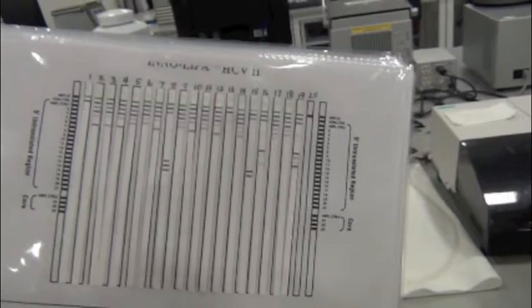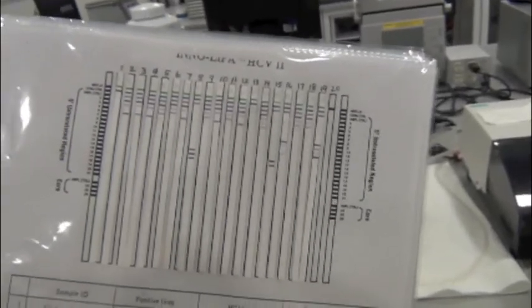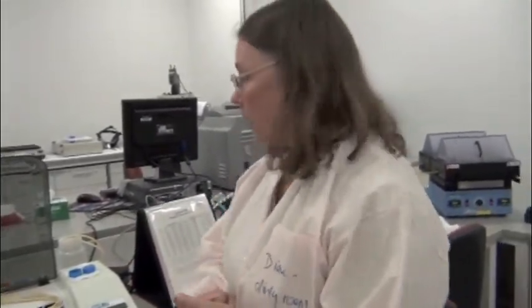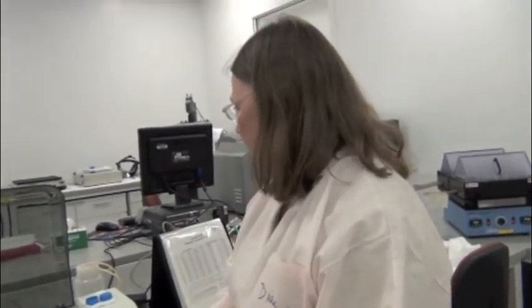A little bit darker. They tend to fade a little bit with time. But you can see how clear they are. They're manufactured that way. So if the amplicon has the particular probe, it will hybridize to that, and then you're going to have a color reaction. First, you're going to have a binding with the conjugate, and then a washing away. It's an ELISA test. Then you're going to have a substrate for color development, and then a stop solution at the end.